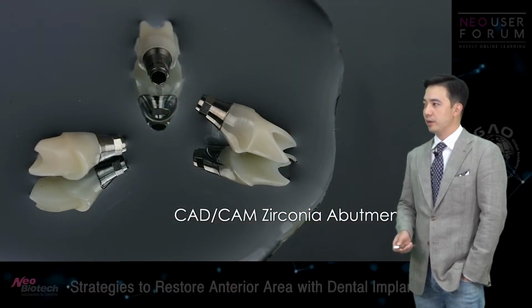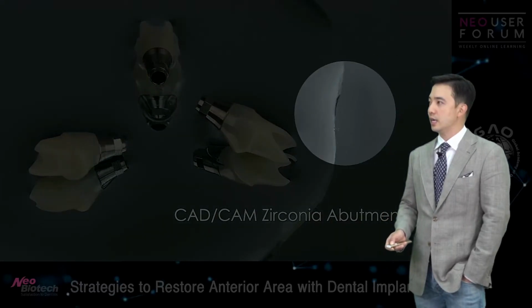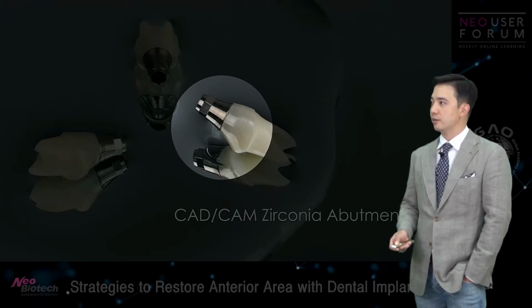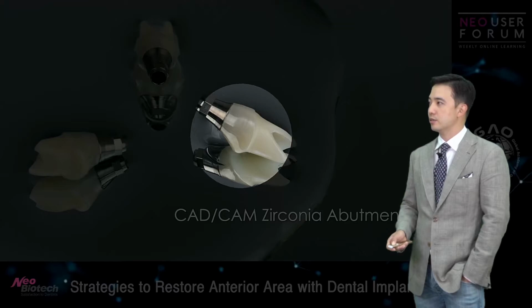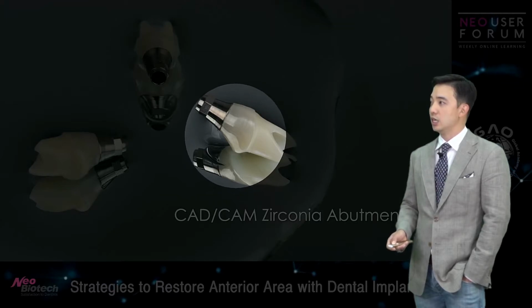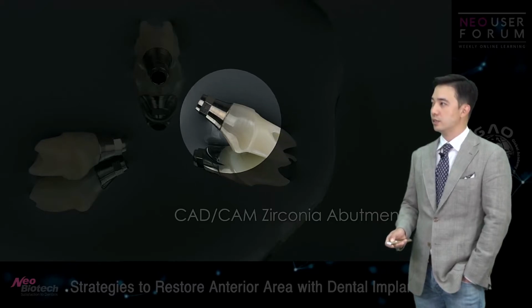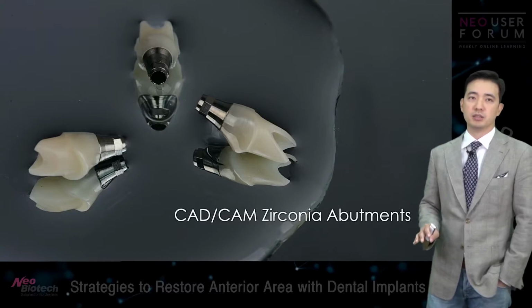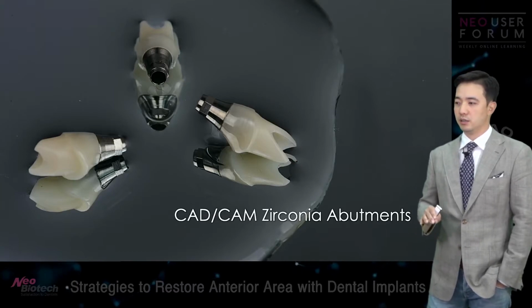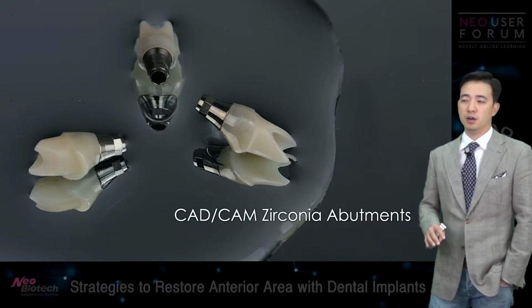Well, the good thing about zirconia abutment, as you can see on the photo here, is that, look at the surface here, okay? Compare those two surfaces between titanium and zirconia and see how shiny and really, really smooth the zirconia surface is. As you all know, the highly polished zirconia surface is the most dense and most smooth surface of all the materials in the field of dentistry.